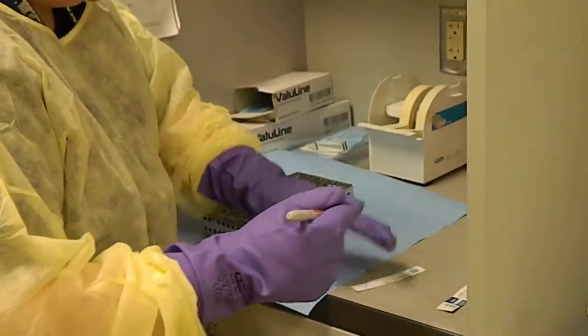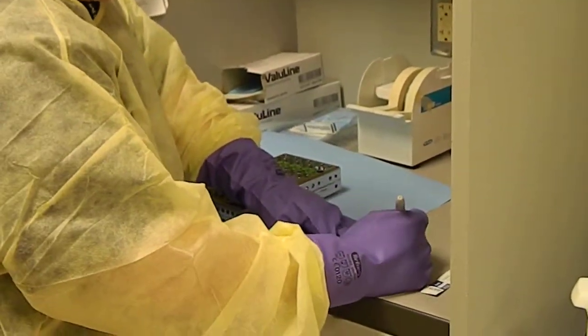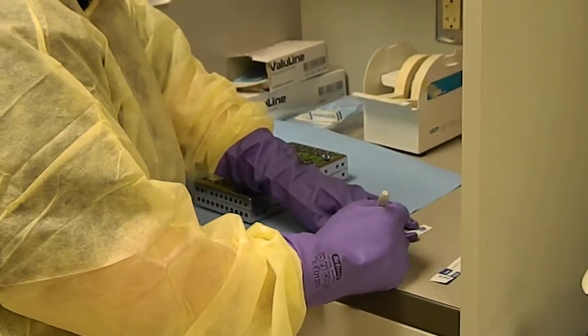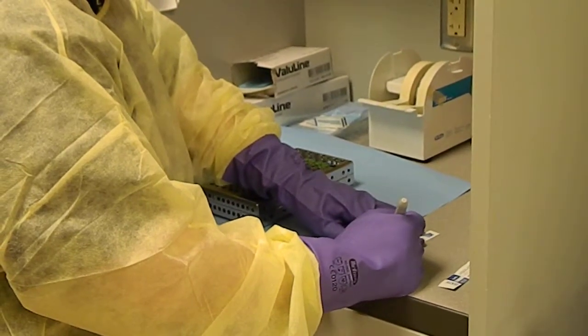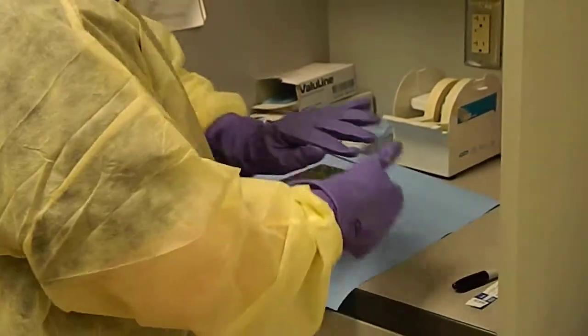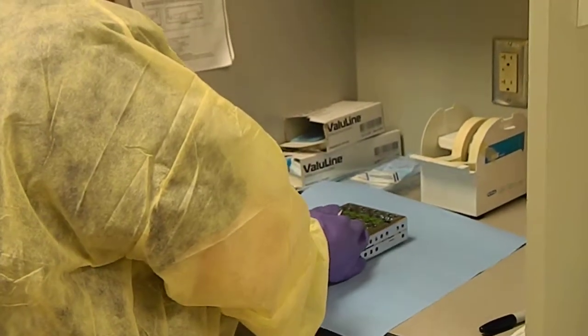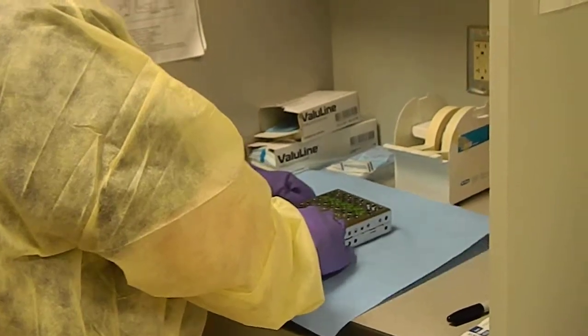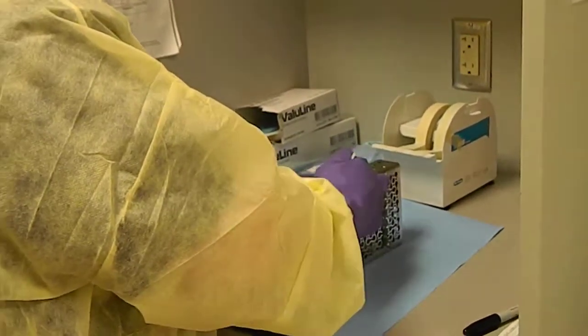So I'm going to put my initial here, JS, and today's date. And I'm going to open the cassette, just enough to slide it in.